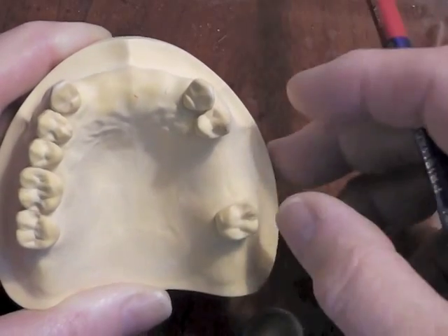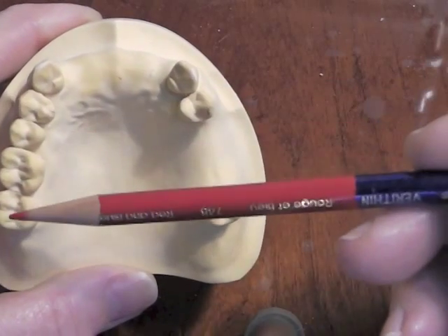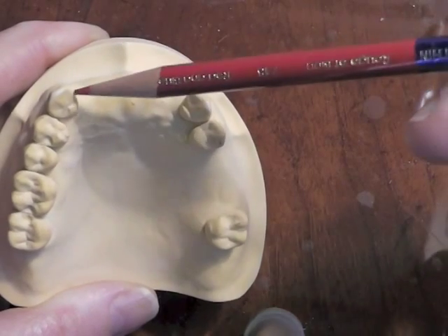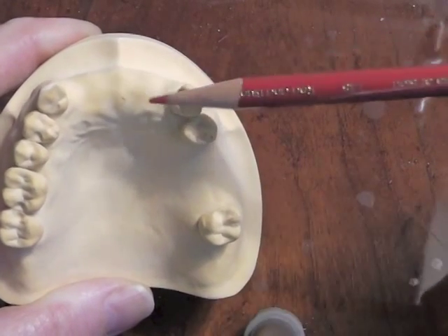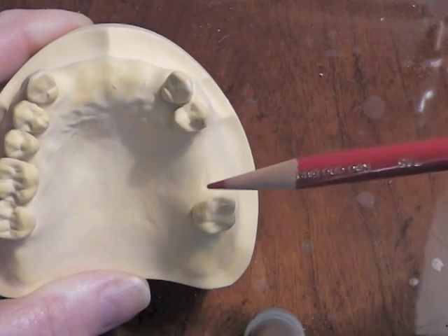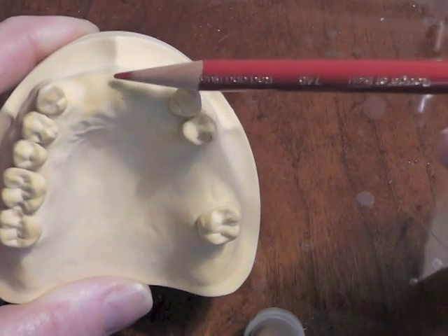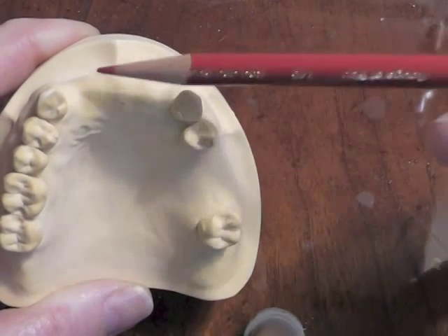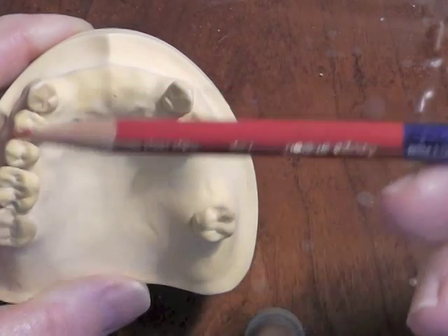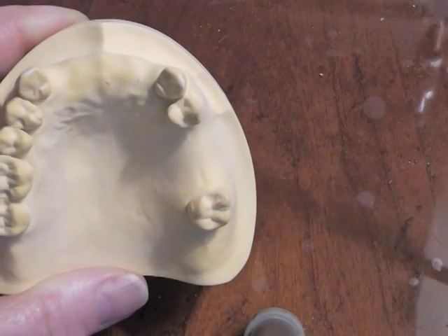As far as a major connector is concerned, we're probably going to be doing the anterior-posterior palatal strap on this particular patient. If all those teeth were present up here, we might think of a simple palatal strap across the midsection, but because we have teeth missing in the front and we have to bring metal up to that anterior portion, we will probably try to do an anterior-posterior palatal strap and place a big hole in the middle of it.